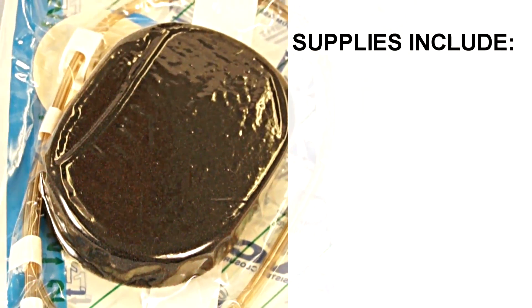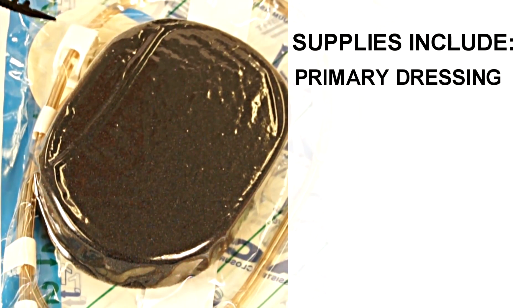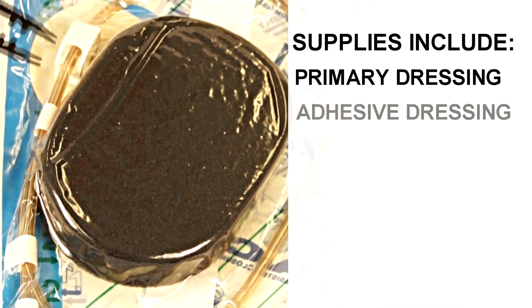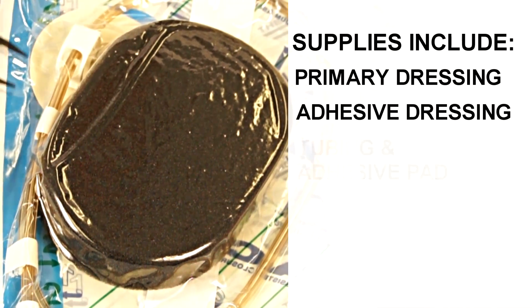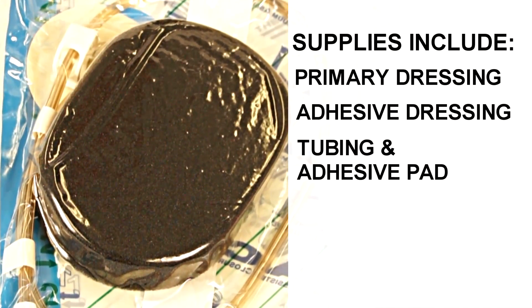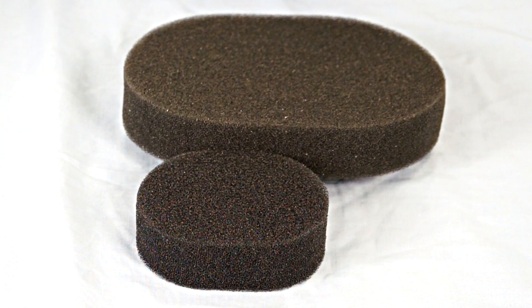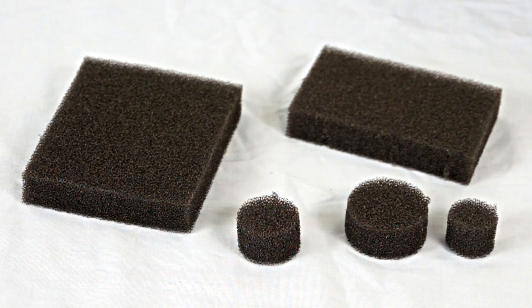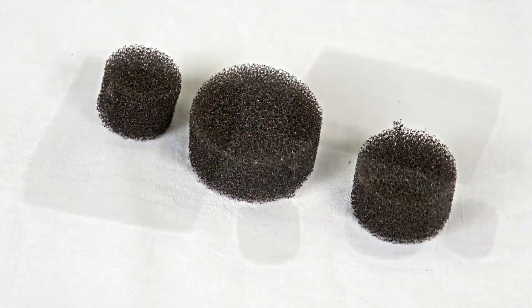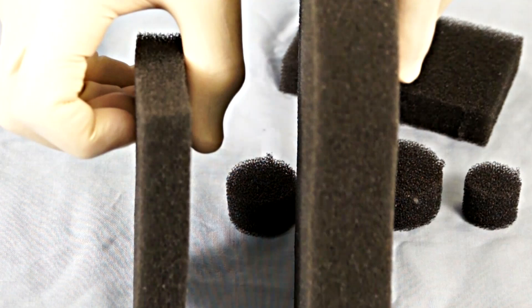This foam comes in a variety of sizes and shapes to fit the specific dimensions of the wound. Also supplied in the sterile packaging is the adhesive dressing placed over the primary foam dressing, as well as the tubing that leads to the negative pressure generating unit. The foam dressings come in a variety of sizes from medium, small, as well as larger sizes, and are also available in pre-cut shapes. Foam is additionally supplied in a variety of thicknesses.